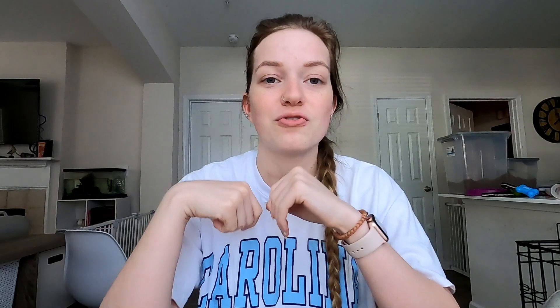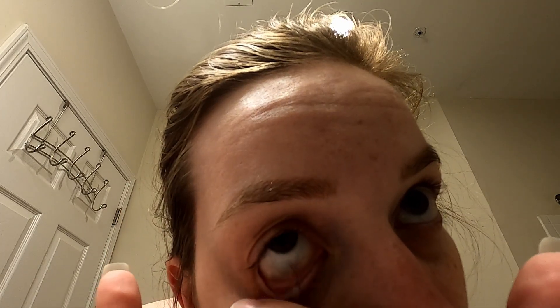For taking them out, wash your hands as usual. I also point my fingernail away from my face since I have long nails — I can't go in there to pinch it off the way a lot of people suggest, because I don't want to scratch my eyeball. So I use the pad part, which is very similar to putting it in. I touch the edge of the contact and swipe down until I get it, sliding it down into the bottom part of my eye until I can just grab it out.